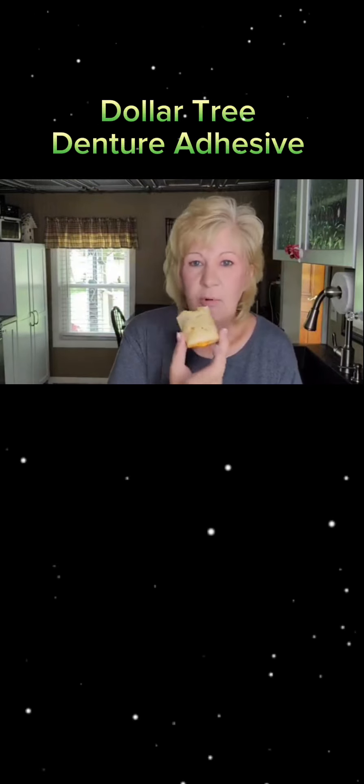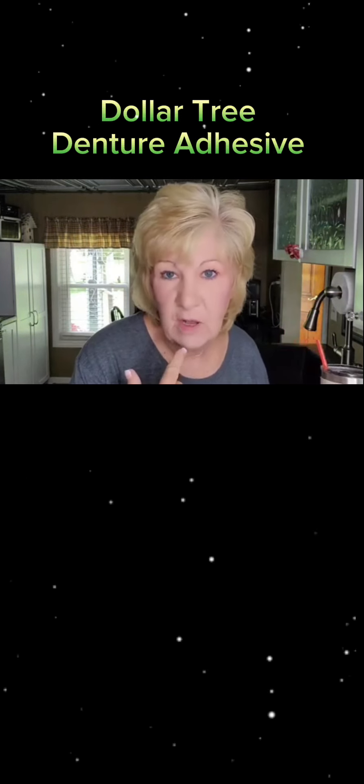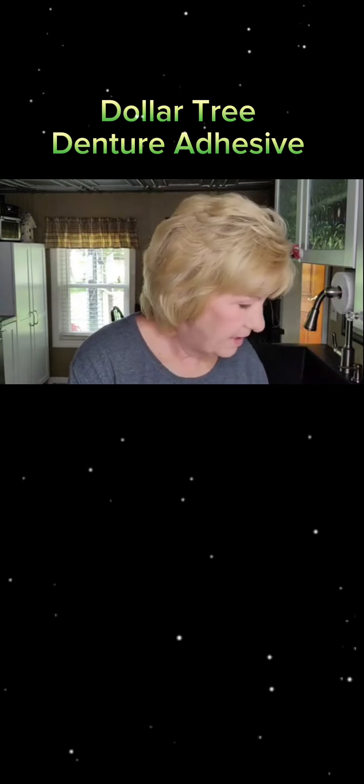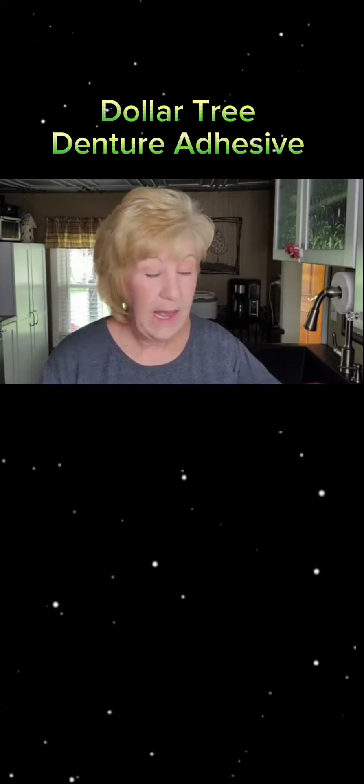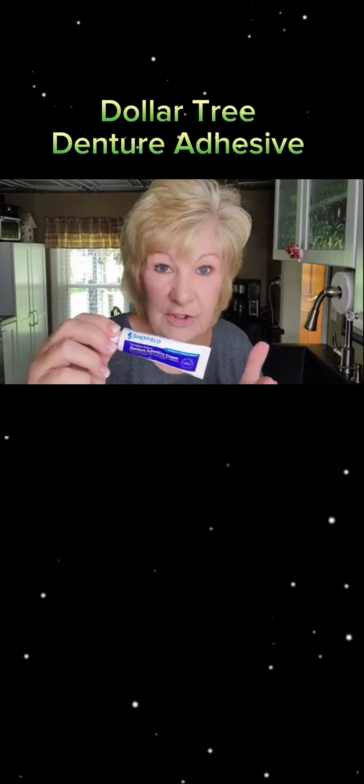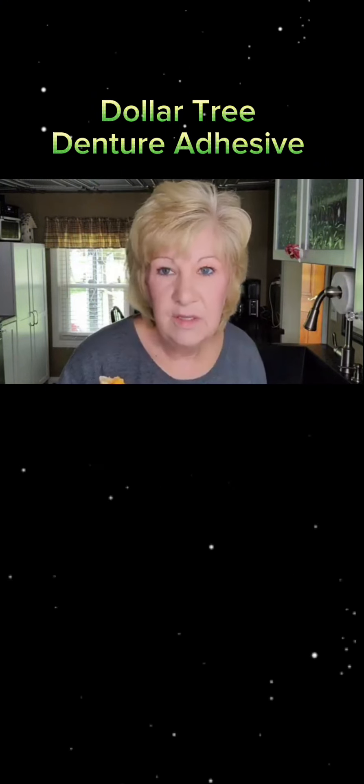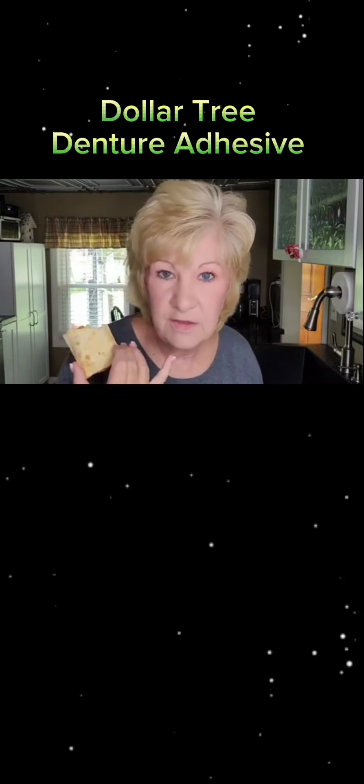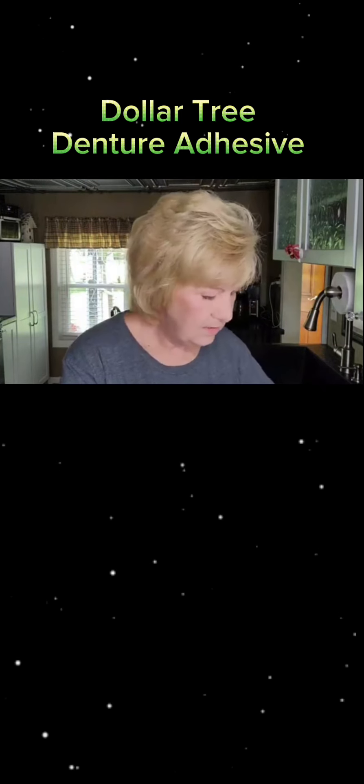It's been a few hours and I'm not having any problem. My bottom denture isn't moving, it's not moving. This is not bad adhesive for a dollar fifty. But don't forget my dentures fit good and yours need to fit good too, so Soft Reline Pro, love it. I don't think this is going to be a problem for the rest of the day. I can already tell by the way it feels, this is a win.